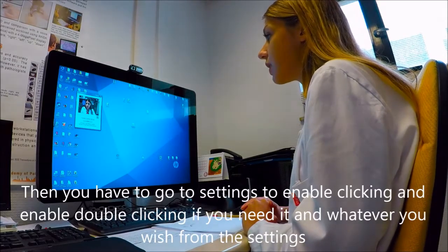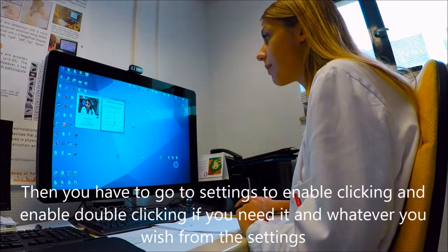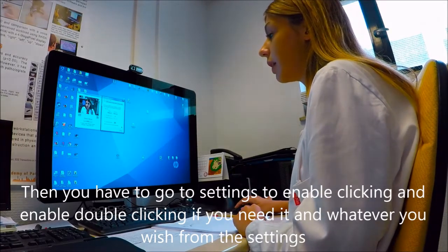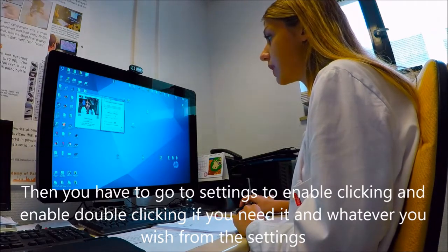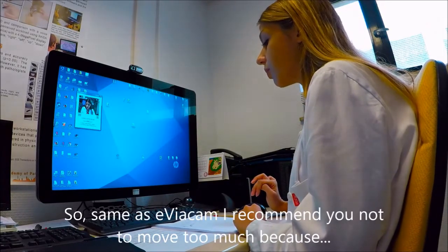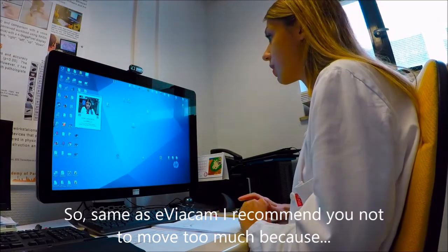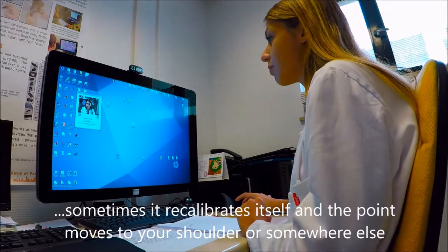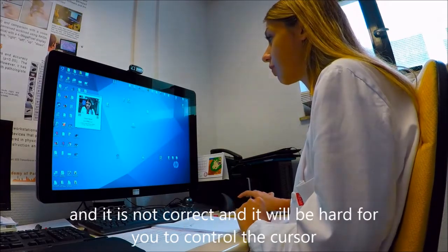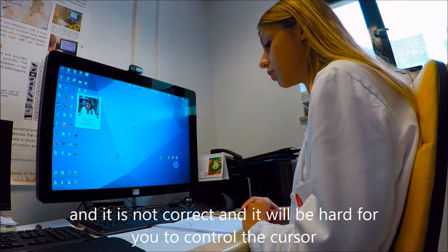Then you have to go to Settings to enable clicking and enable double clicking if you need it, and whatever you wish from the settings. Now you are able to click with your cursor. So, same as eViacam, I recommend you not to move too much because sometimes it recalibrates itself and the point that you have chosen moves from your shoulder or somewhere else, which is not what is best for you, so it will become hard for you to control the cursor.